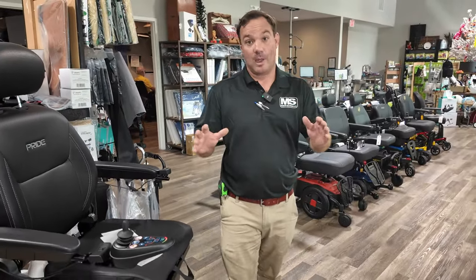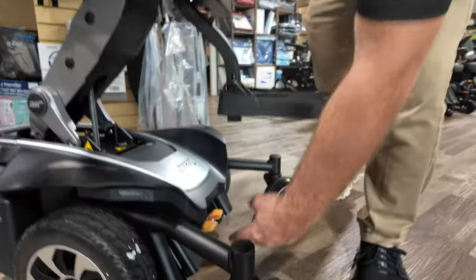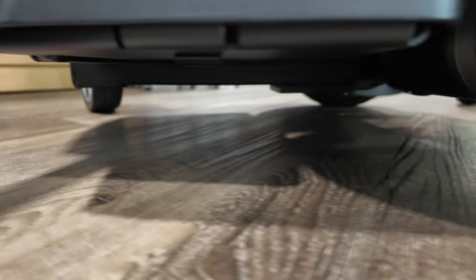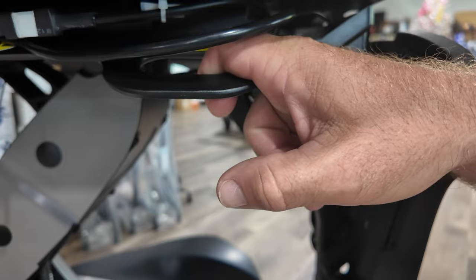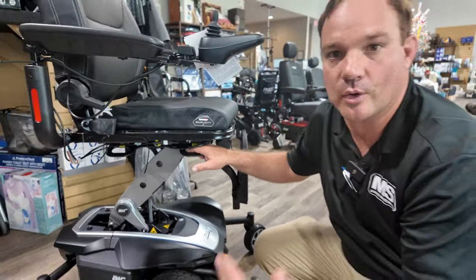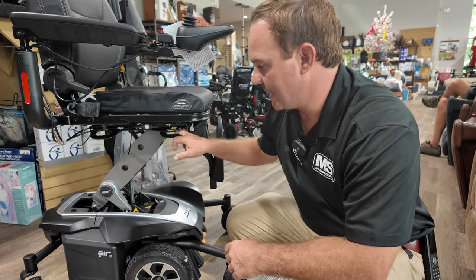Go with the solid seat if you have low ground clearance, for example if you have a ride-in van with a ramp. You can't add a lock-down underneath it if it's too low to the ground. However, you do still have straps built onto it. If you have an AL500 lift by Harmar, AL600, or Joey lift hybrid lift, you have locking straps that can go in here. If you're a bus rider, you can lock here.